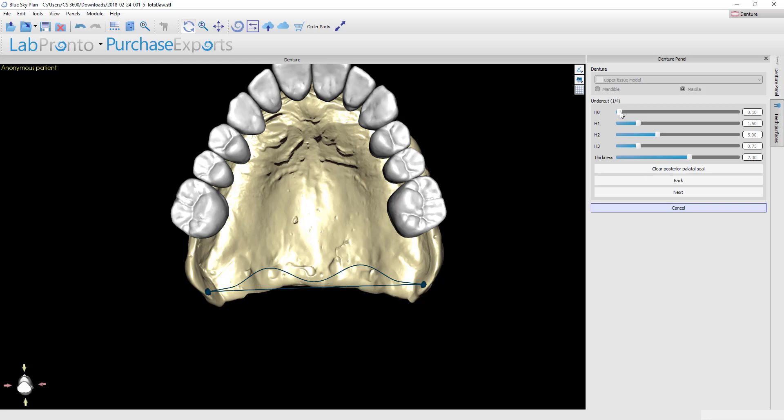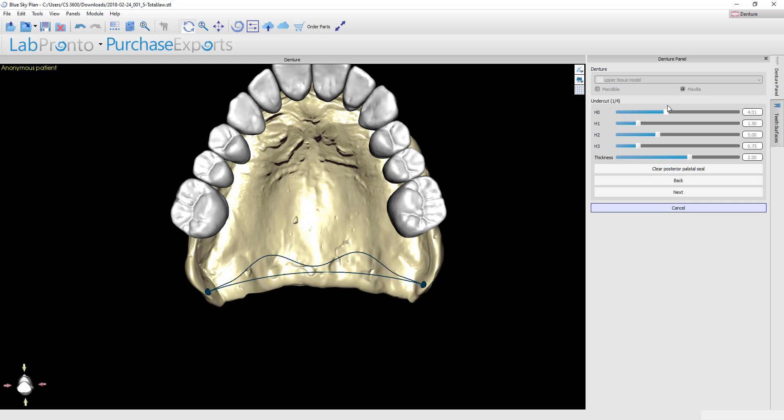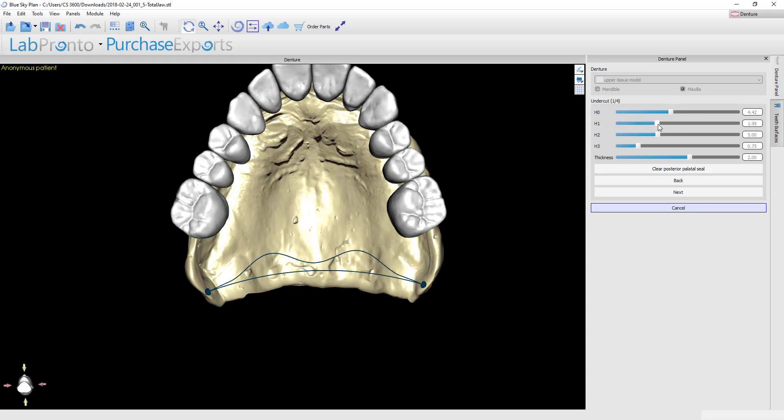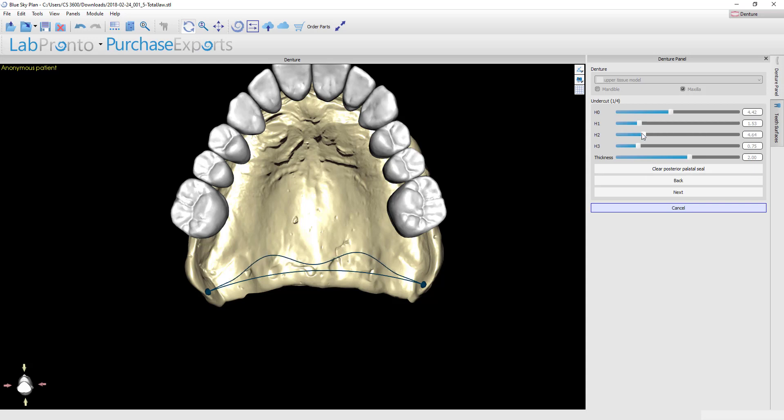Now you've got sliders that can help you to modify this. It's falling off the back of the model here—I actually want to bow that upward towards the anterior. We'll just play with these other sliders to show you how they modify. This takes the slope out of the very middle of that cupid's bow. This is going to take the depth of the bow up or down, and then finally you've got how wide do you want to make that bow go. And finally, the thickness.